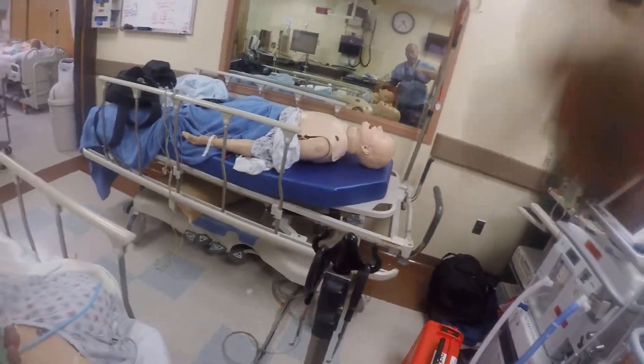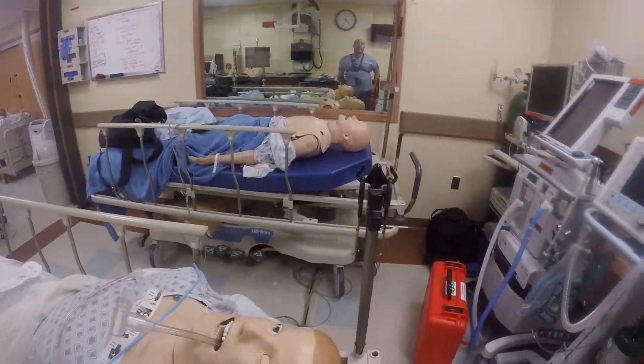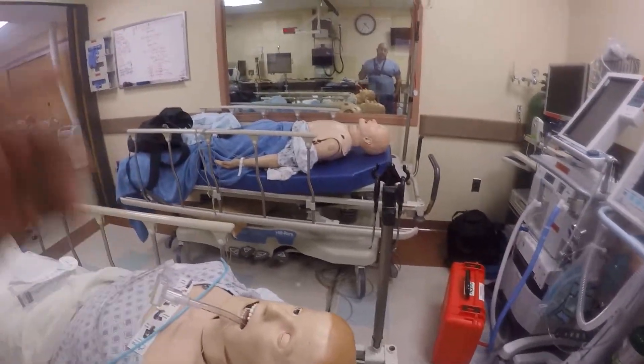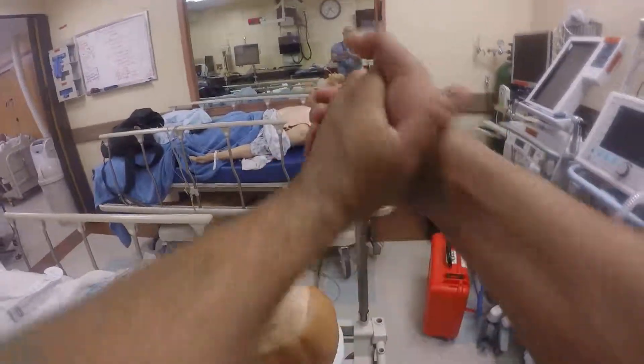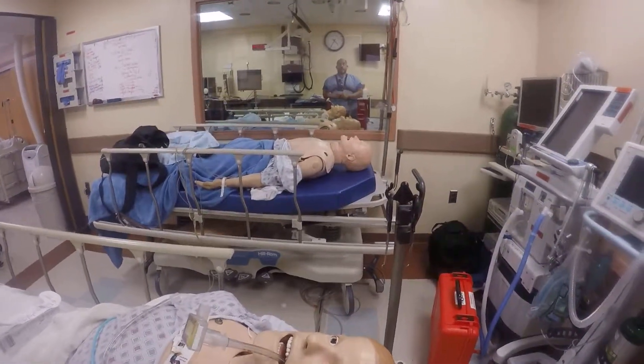It is. Just another way of using channel devices in a safe manner. Patient safety first, not the ego of the doctor. The bougie is your friend. If the airtraq is your friend, the bougie definitely is your friend. Please come back for another episode of School Airway. Good night.